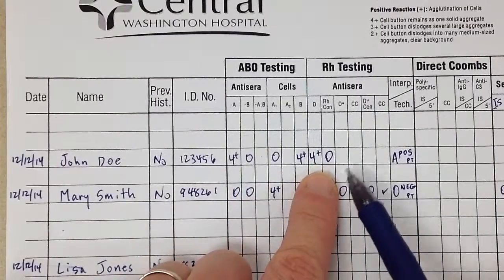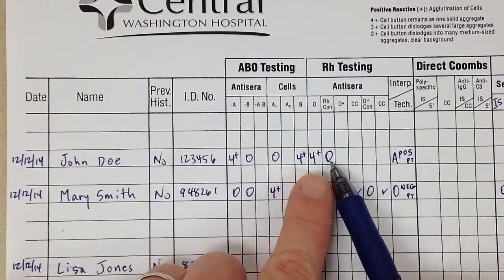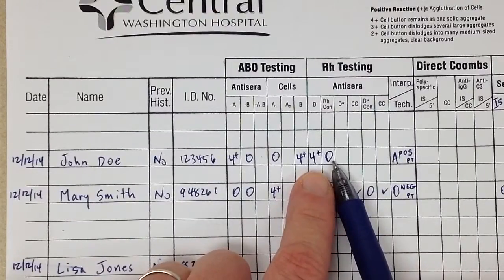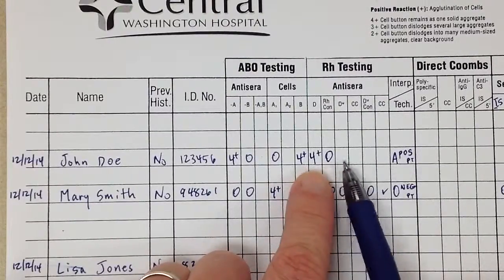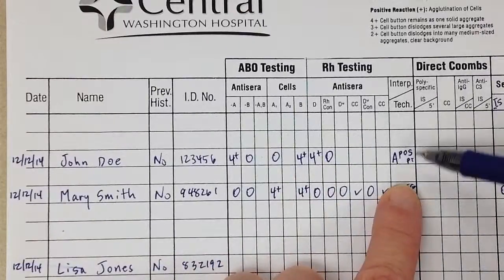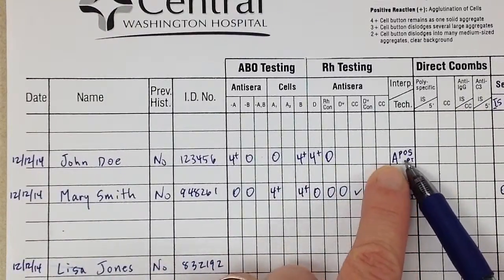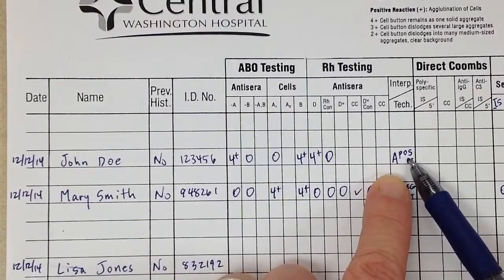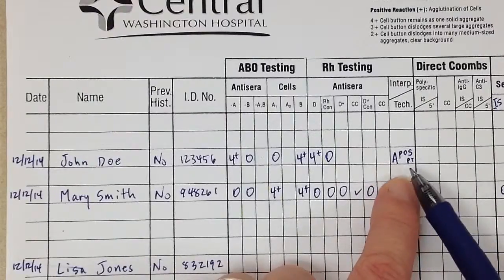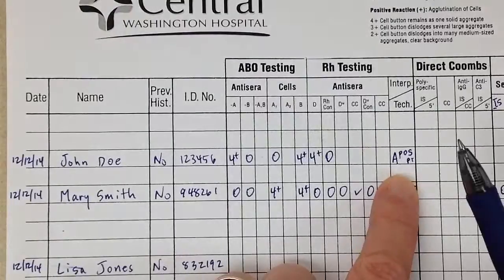Sliding over to RH testing, the D was positive and the control was negative, so we can stop there. This patient is RH positive. Over here we write the interpretation as POS - we write it out, not just a dash mark - and then I put my initials.